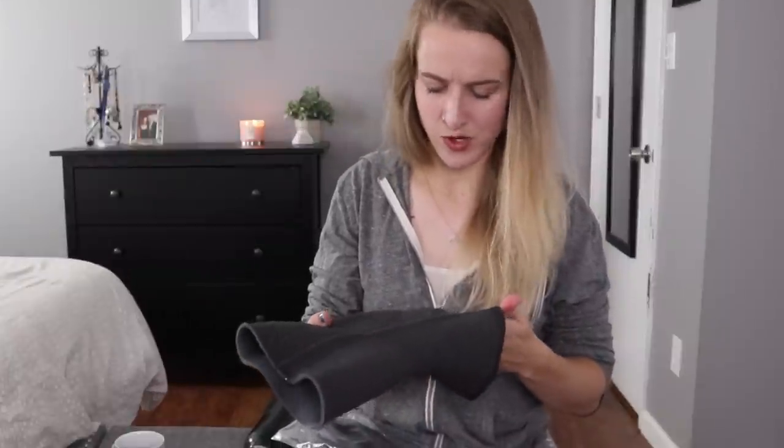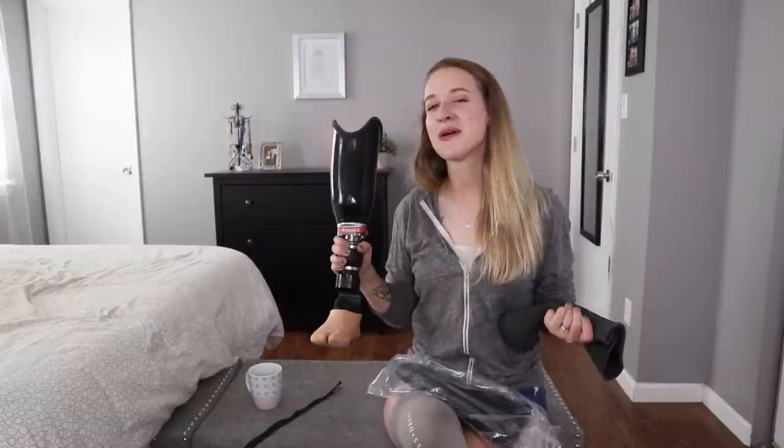But the inside of this is made of a very, very sticky substance — it's rubbery, almost feels moist even though it's not. Yes, I used that dreaded word. And trying to get this on to the top of this can pose some problems. In fact, my prosthetics team has come up with a demonstration reel of ways not to do this that people actually try.